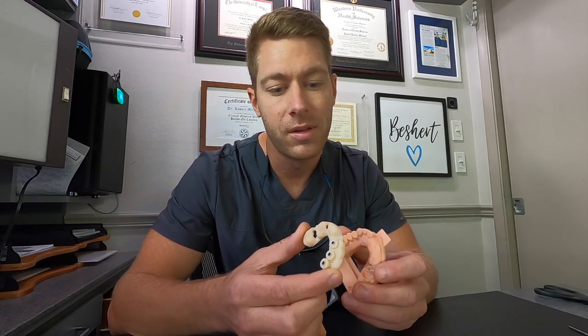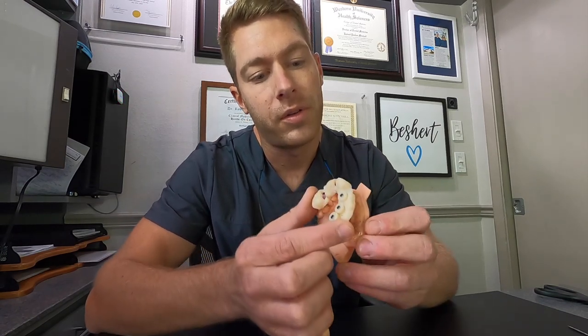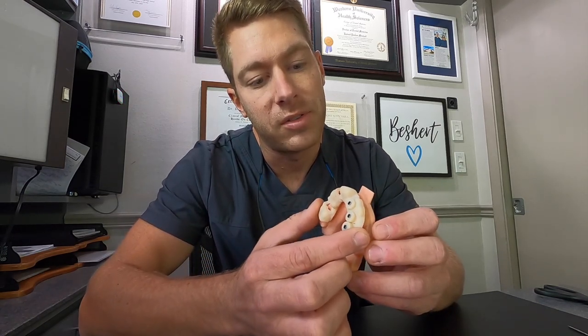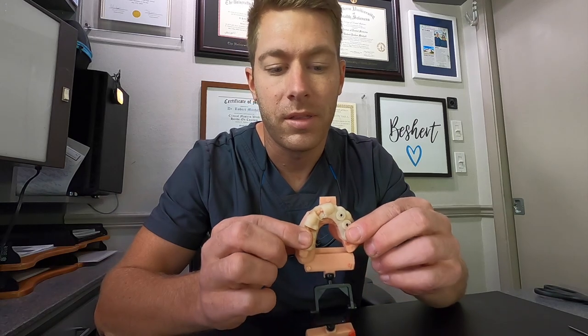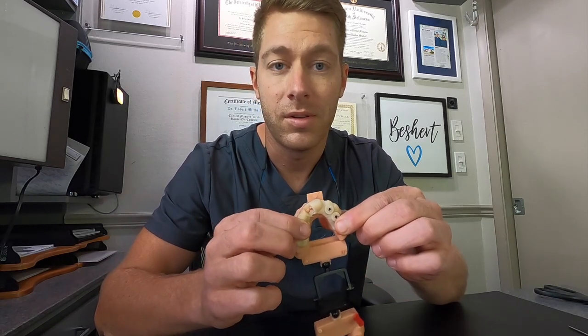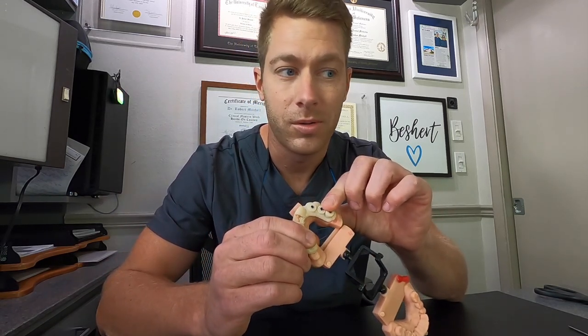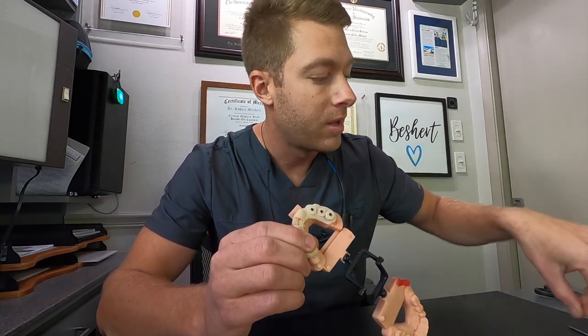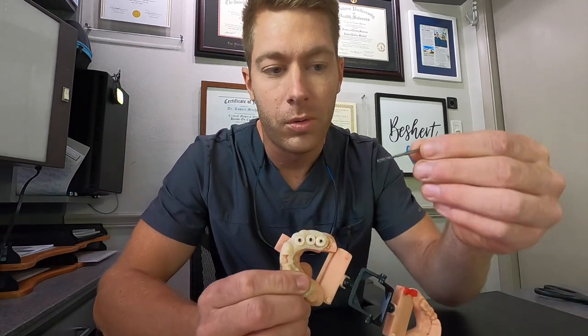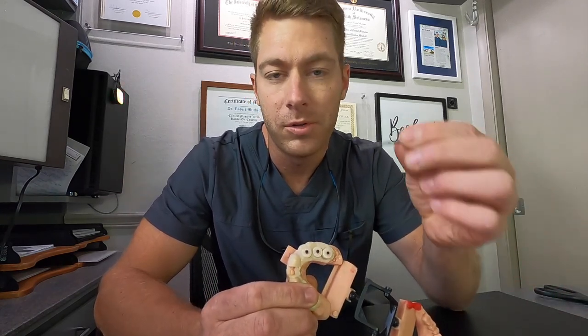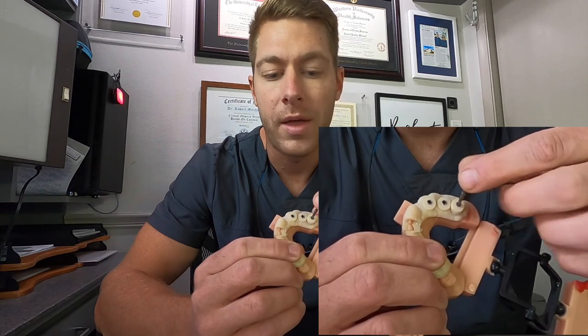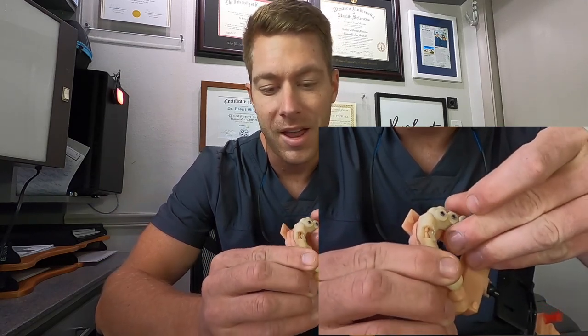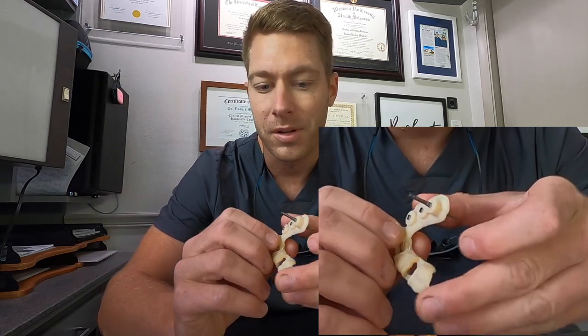And these surgical guides, for instance I placed three implants on this upper left area to replace about five teeth, are designed to fit over their teeth exactly like this. And this is an actual case that I've already used. And these small pilot holes I'm able to use a pilot drill and go at the exact angle direction and depth to my pre-planned implants. And that way it goes exactly as planned.